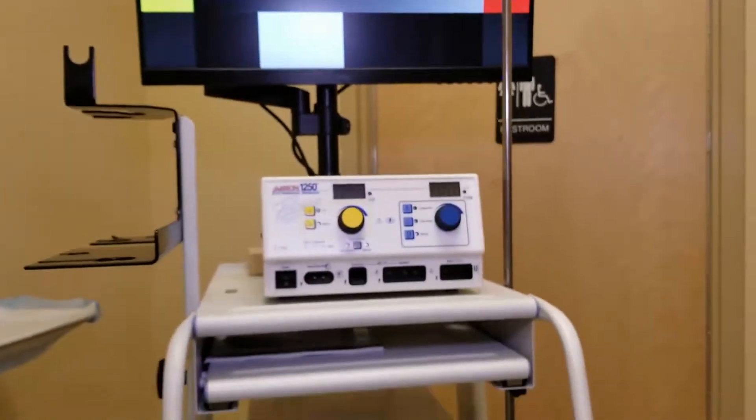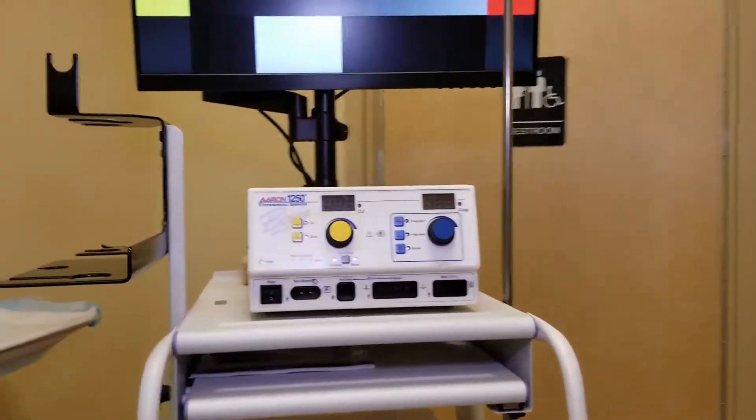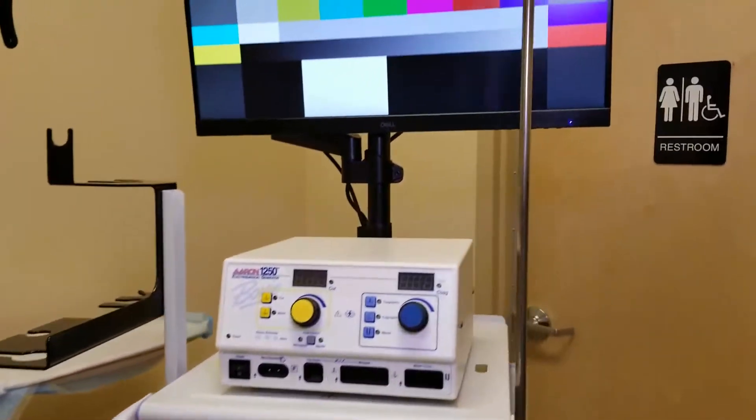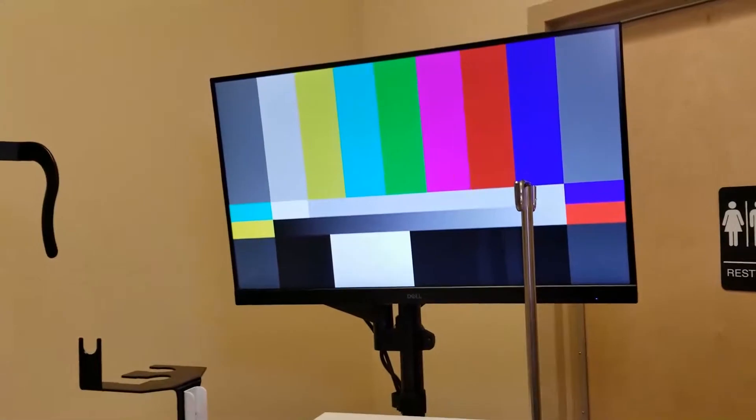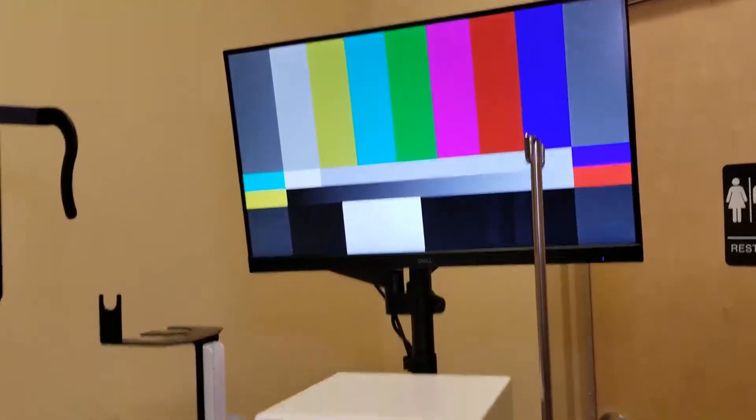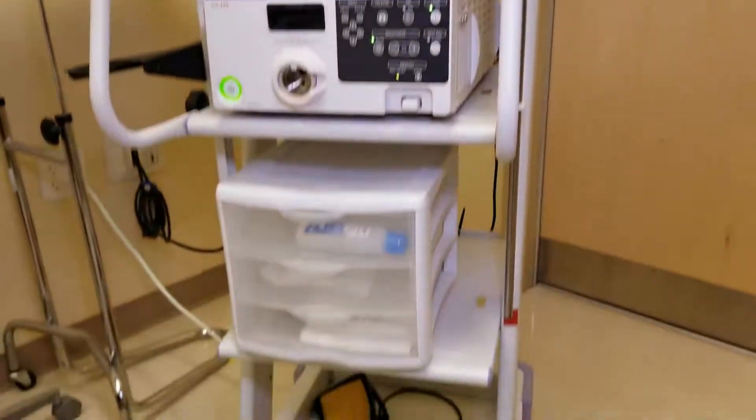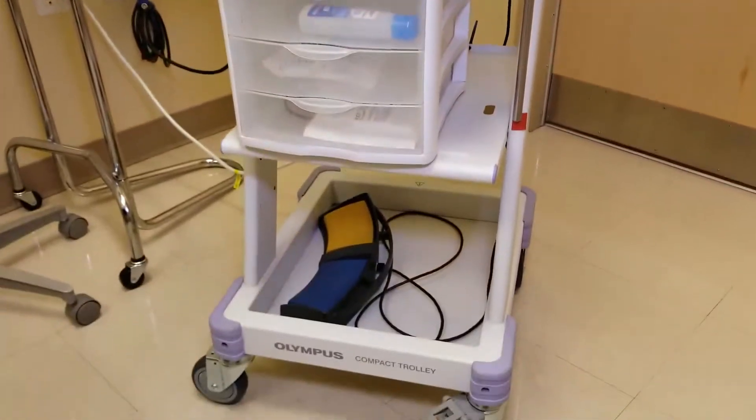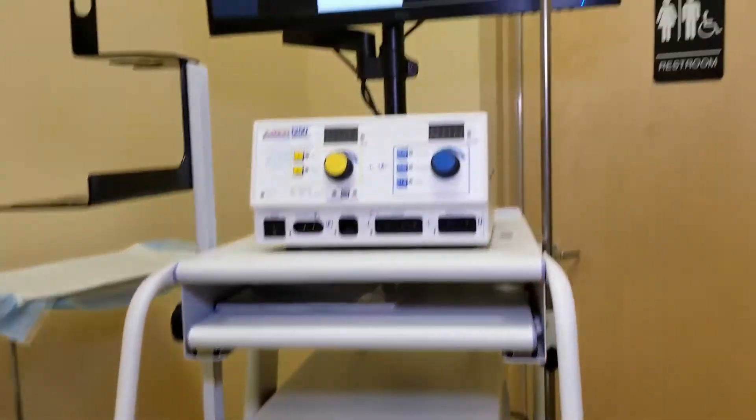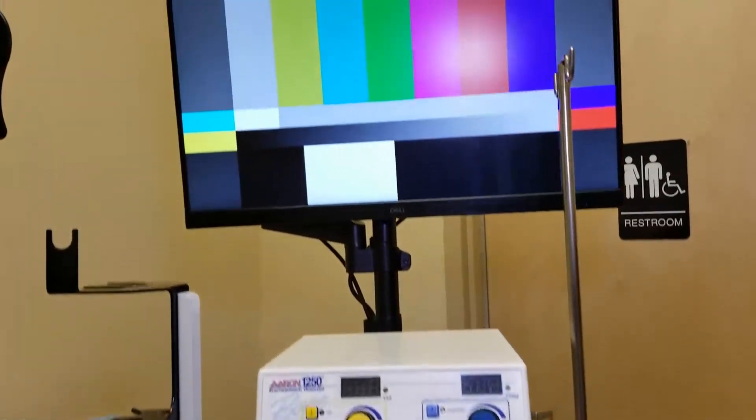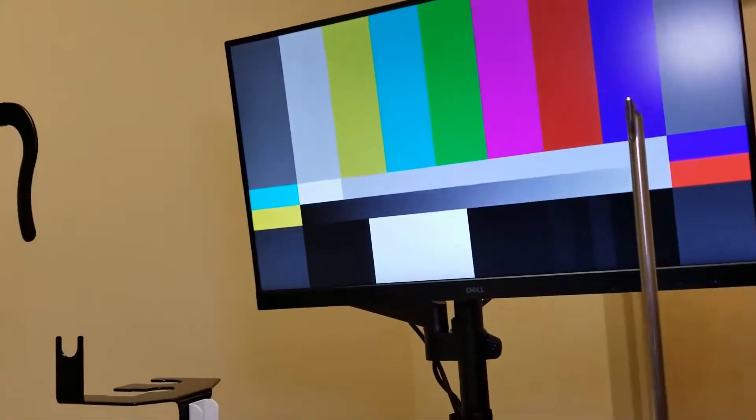If I want the patient to see what I'm seeing, it is often better to have a monitor attached at the foot of the bed to this trolley. I'm going to show you how to inexpensively make this happen.